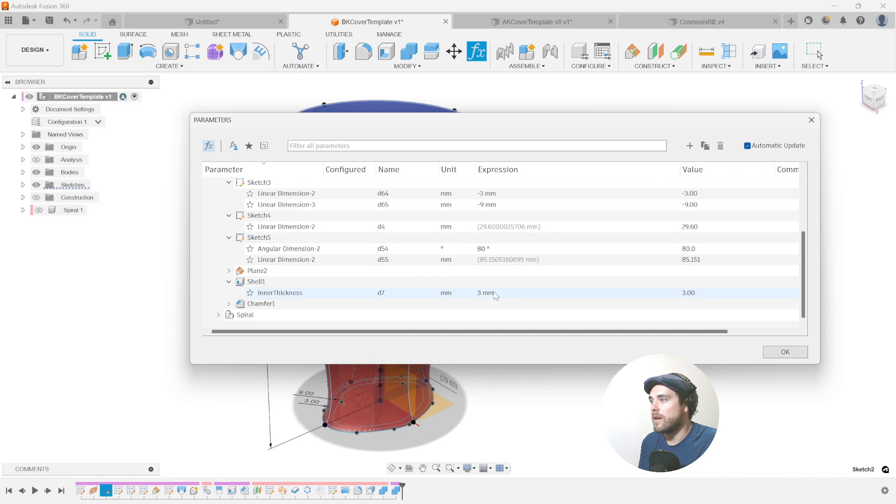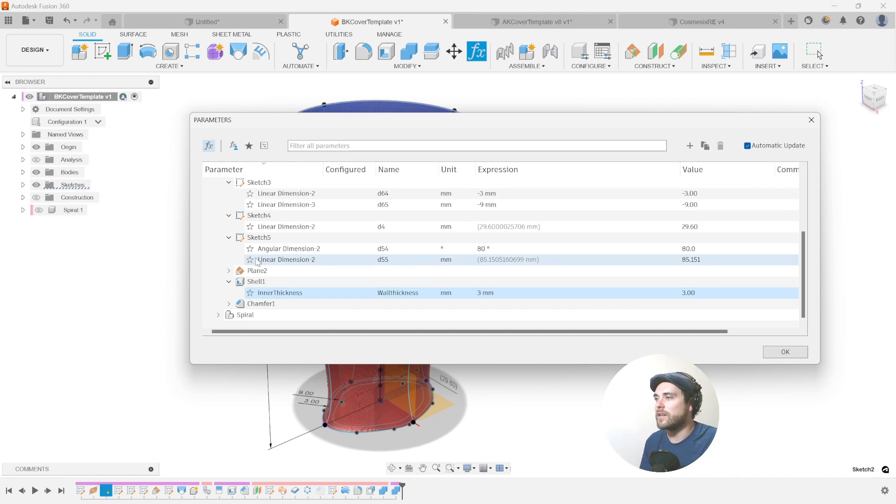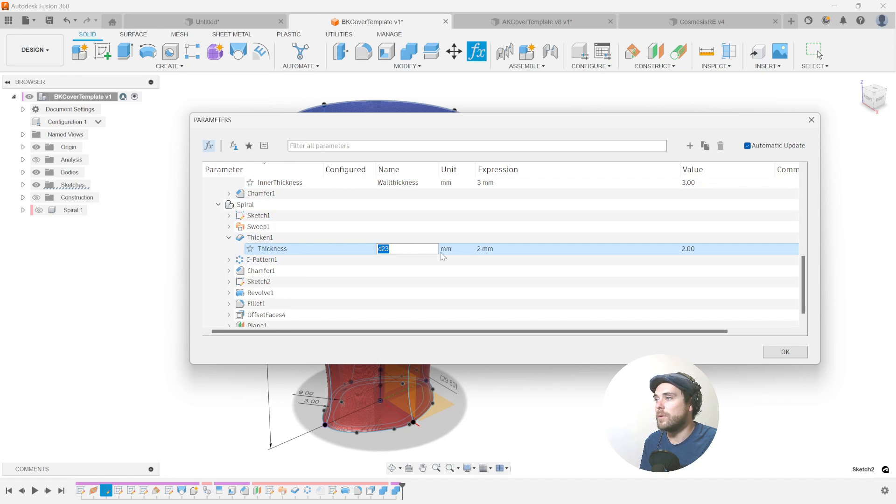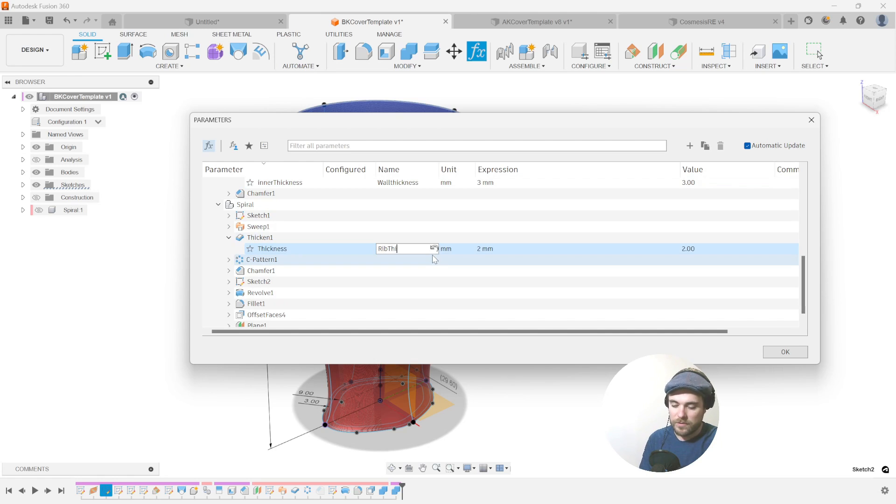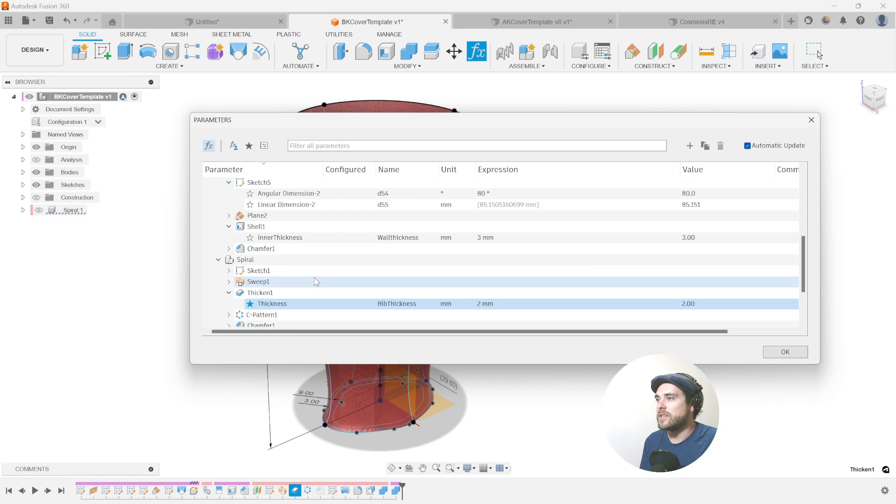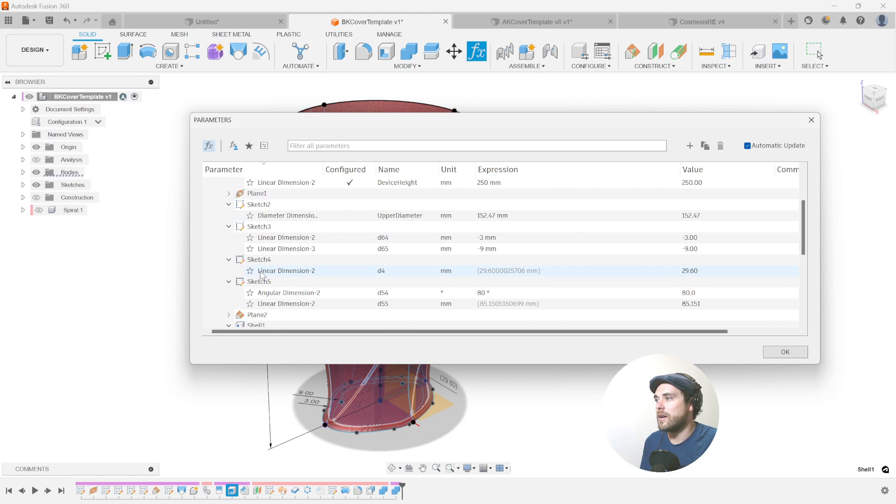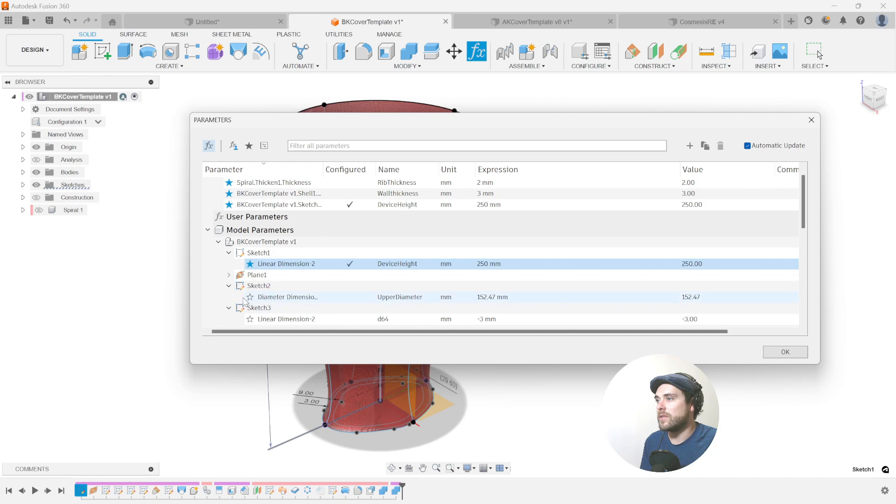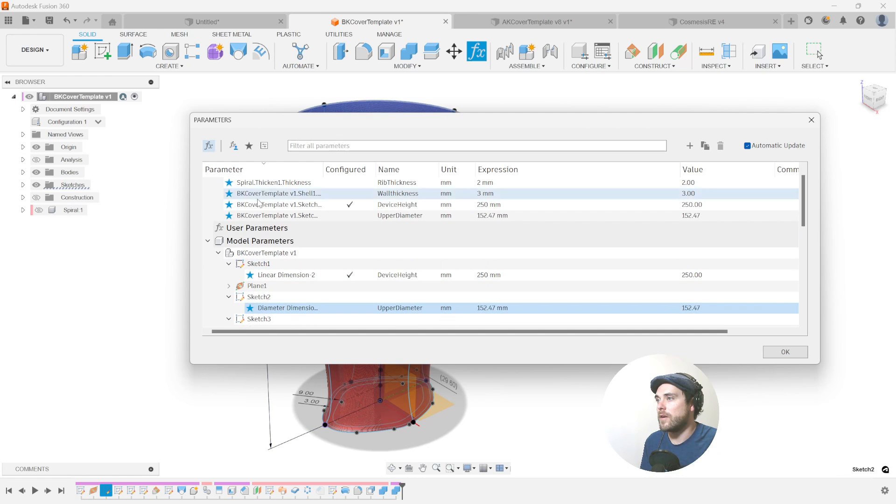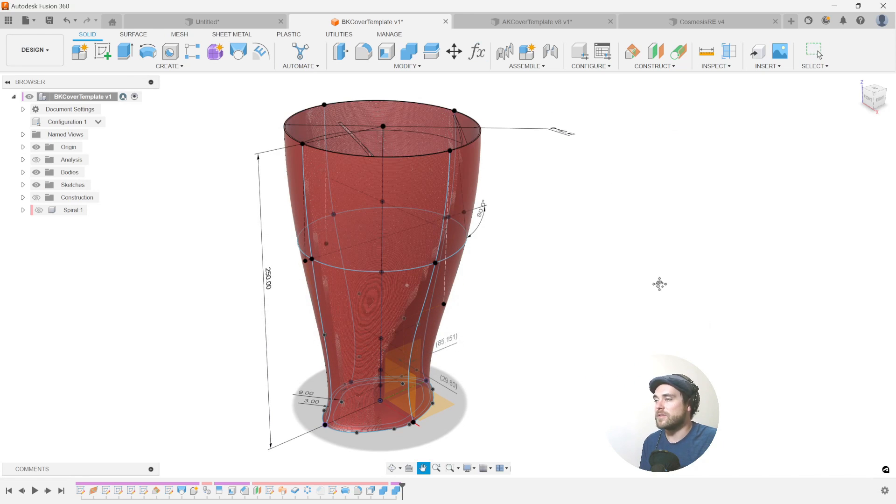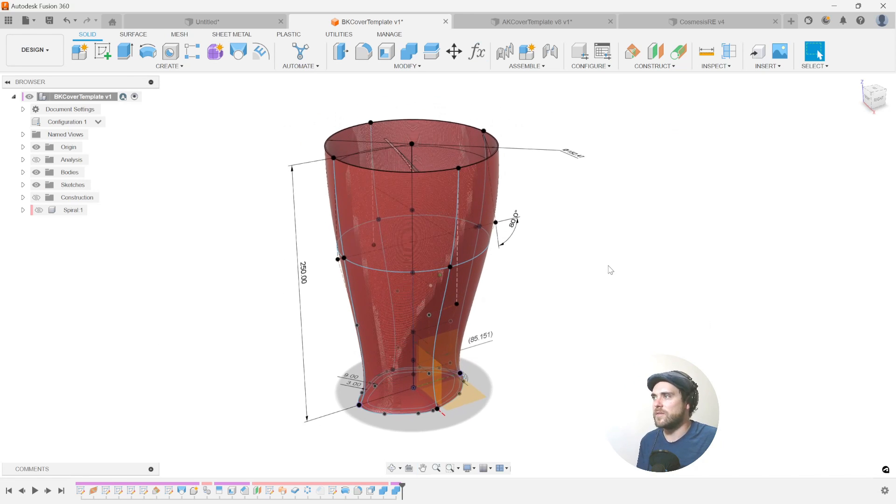So going through the rest of these, the shell command is our wall thickness. So maybe this one can be our wall thickness. And I can't have a space in the name. That's why it's red. Let's try wall thickness. And then when we get to the ribbing, I think one of the important ones is to find where the thickness of the ribs is and to give that a name as well. So if I star that one, it's going to show up at the top. Anything I've given a name to, let's bring those up to the top of our parameters page. So that used to be where you could go and quickly update the table with features and dimensional changes nice and fast.